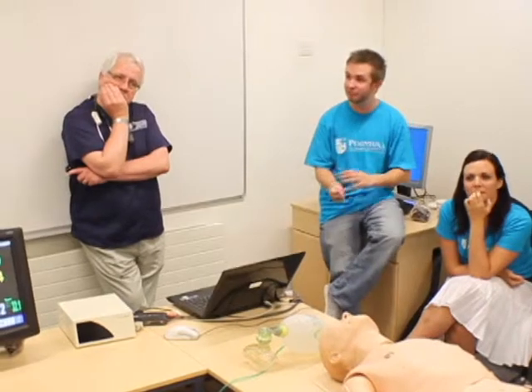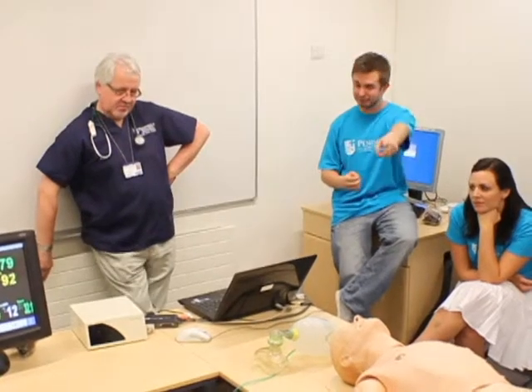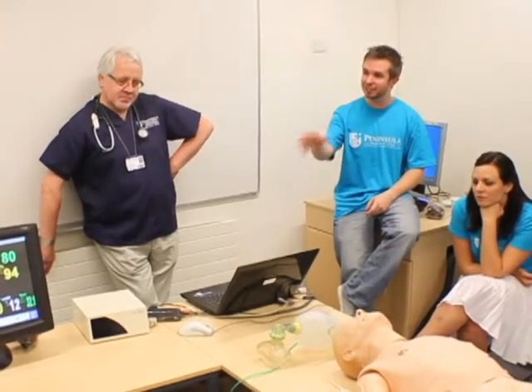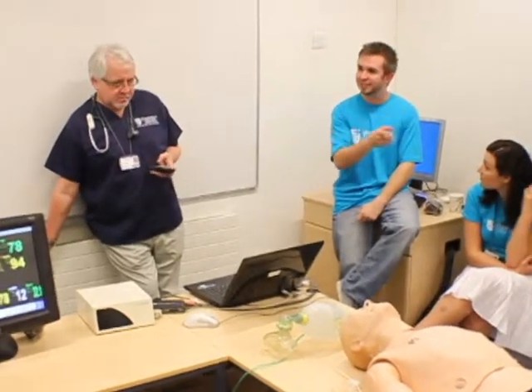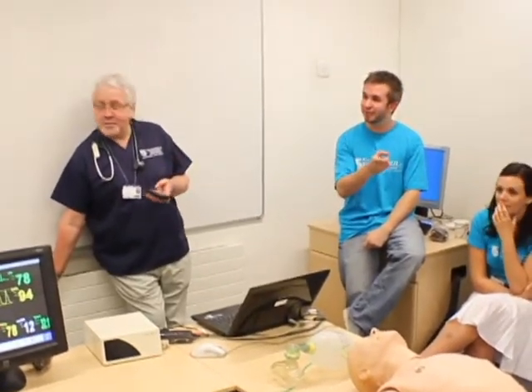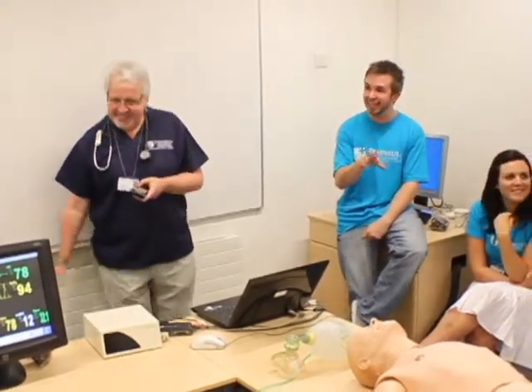It's very strange. When you're actually in the room, you really don't want this patient to die. It becomes very real and you all start getting into this delusion that this is a real patient. It's odd when you look at it. When you first go in for your first sessions with Sim Man, it's all very not realistic — it's kind of, this is a plastic man with big metal things where his nipples should be. But you soon get past that because everything starts happening and you actually do see a change: he grimaces, things actually happen. He'll stop breathing, he bleeds in some cases, he can vomit. It's very hard to explain, but it does feel like that.